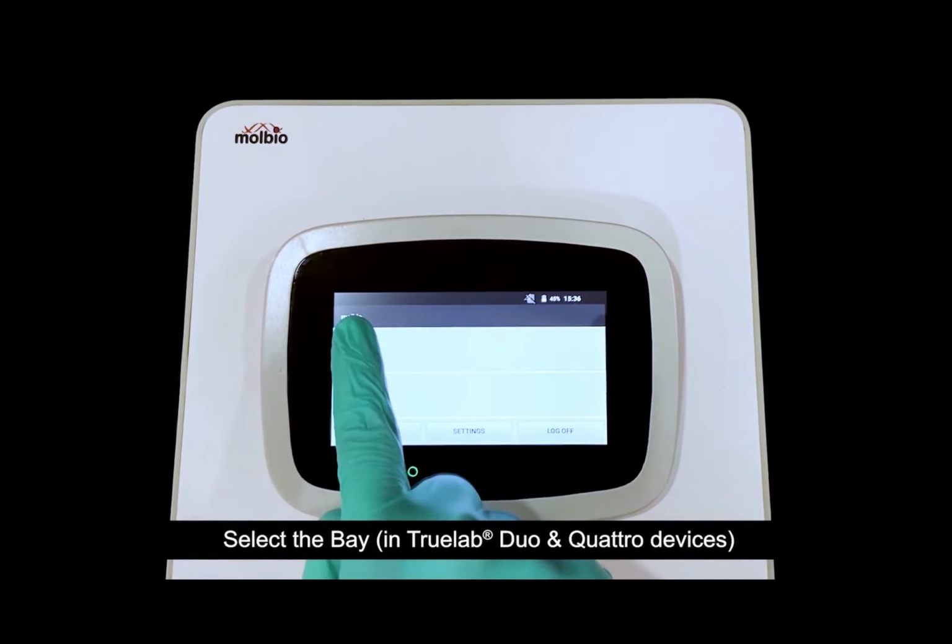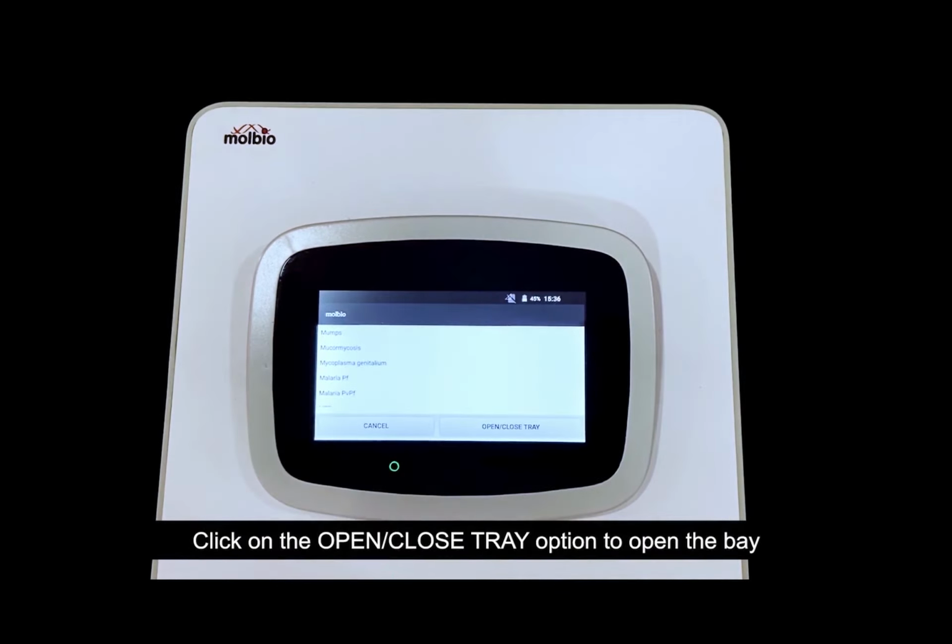So first select the module. If you have a duo machine, you will have two chip trays, so you will have two slider glasses. Both have to be changed depending upon how many tests are done on that module. So each module after 200 tests, you have to change that particular slider glass. Here you don't select any assay. You just click on the open tray option.